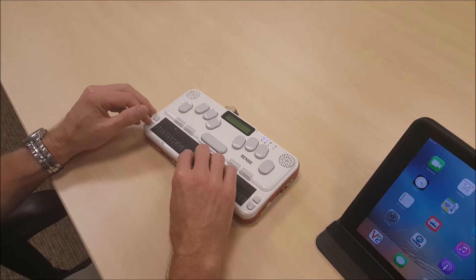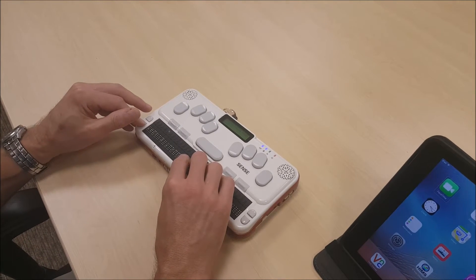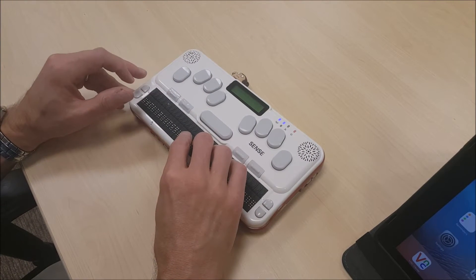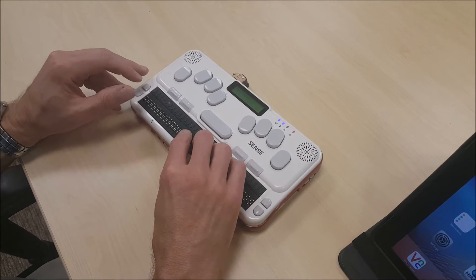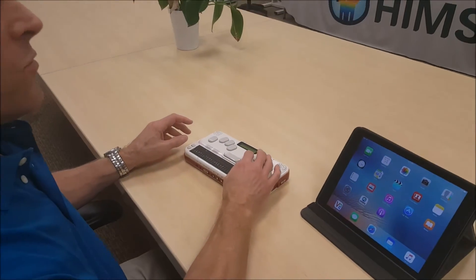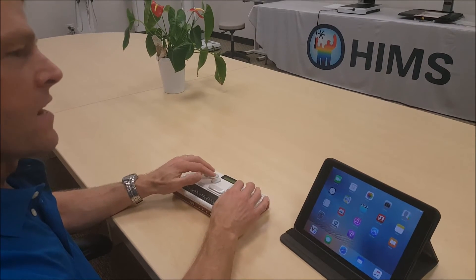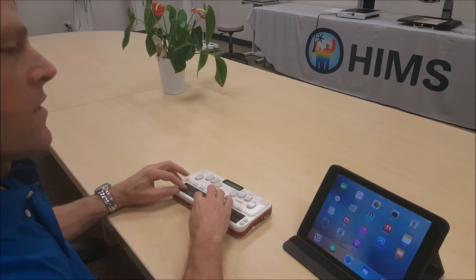The BrailleSense announces the first item in the UTILITIES menu, which is Calculator. I am going to scroll down to VNC mode. I could have skipped all of that by just using the shortcut key V. You can also use a hotkey to launch VNC mode from anywhere on the BrailleSense at any time with FUNCTION KEY3 and V pressed simultaneously. I am going to go ahead and press ENTER on VNC mode.